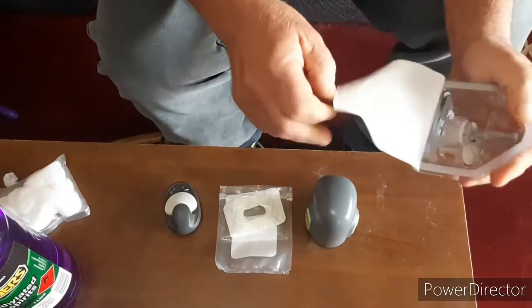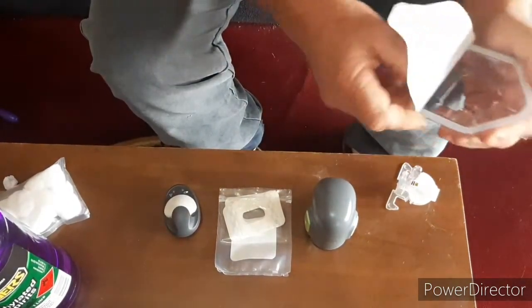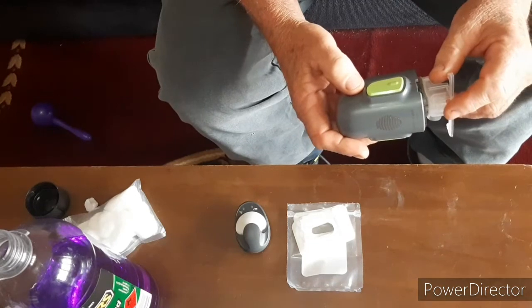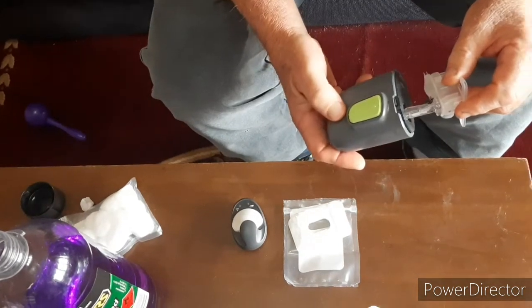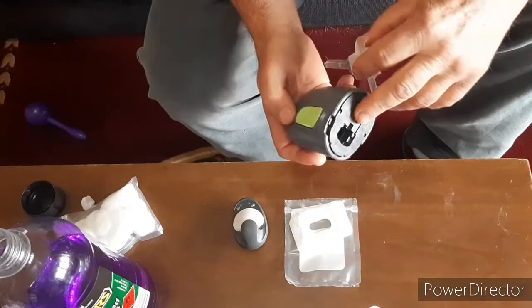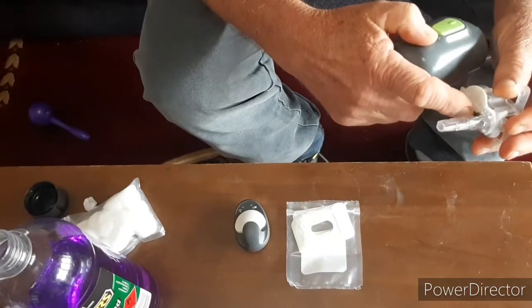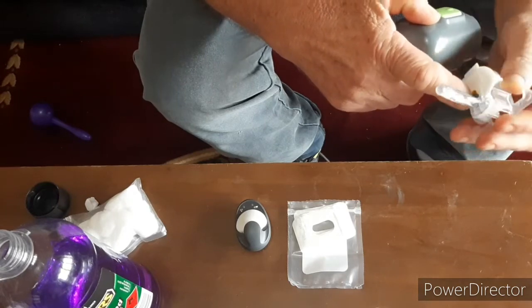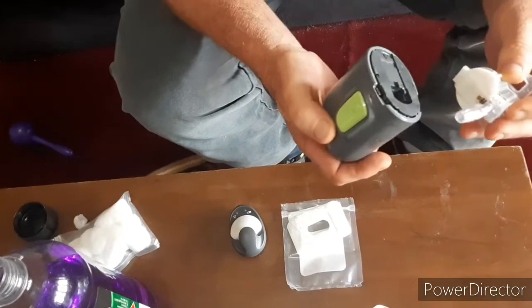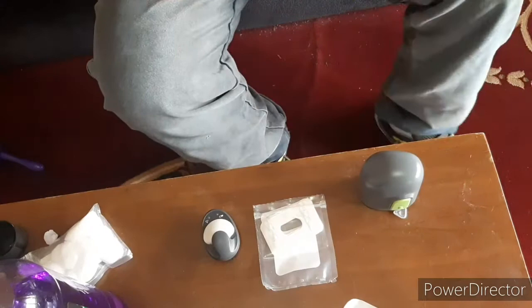Open the packet and remove the whole item, then put that aside. What you need to do is push it up so that it goes in that way. There's a little bit at the back here — a cutout area — which fits in over the needle housing, or what's called the seat for the sensor. Push down firmly.